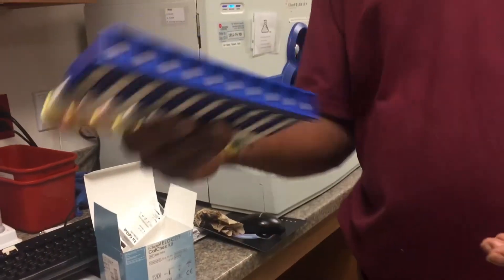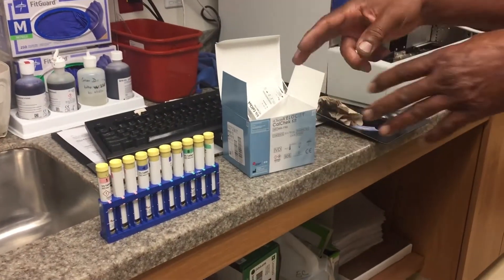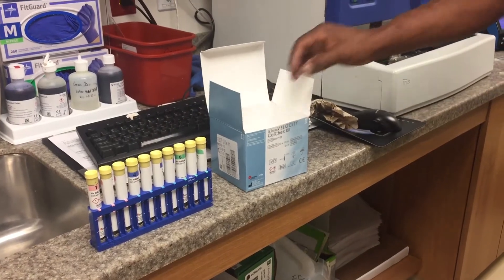We're going to invert them about two to three times — invert it two to three times and let it sit. Then we're going to wait for this, because this is going to be reused also in another 90 days.